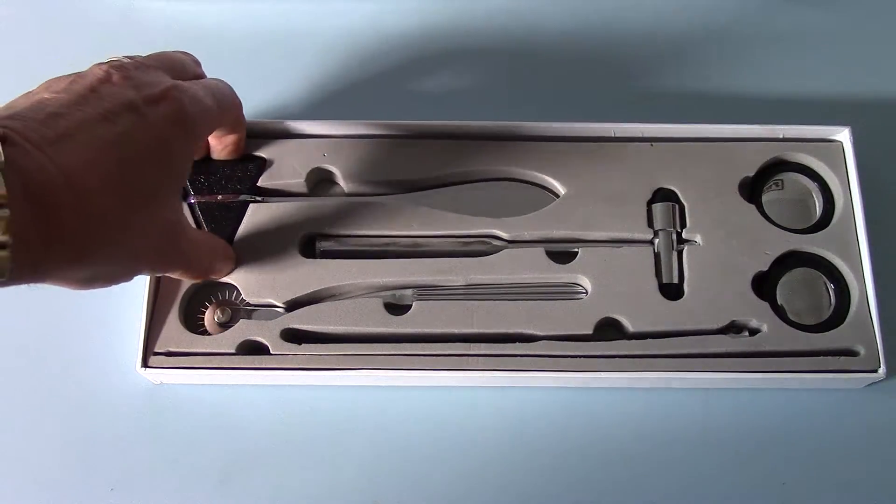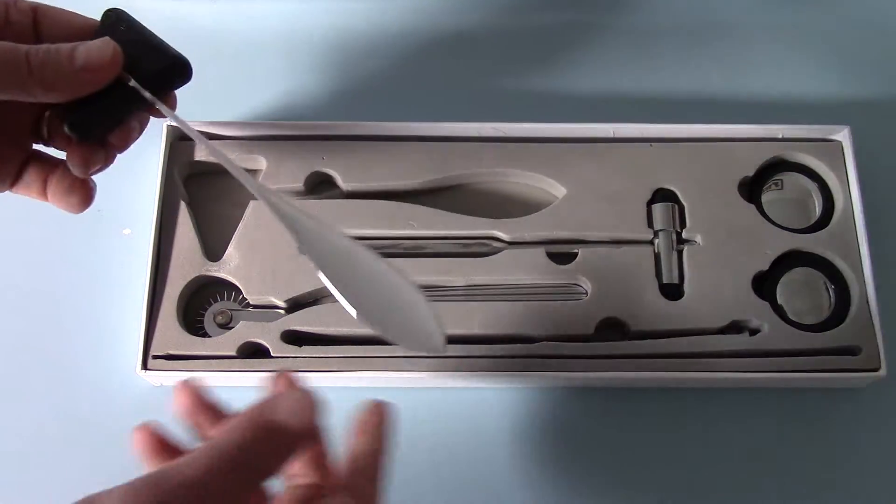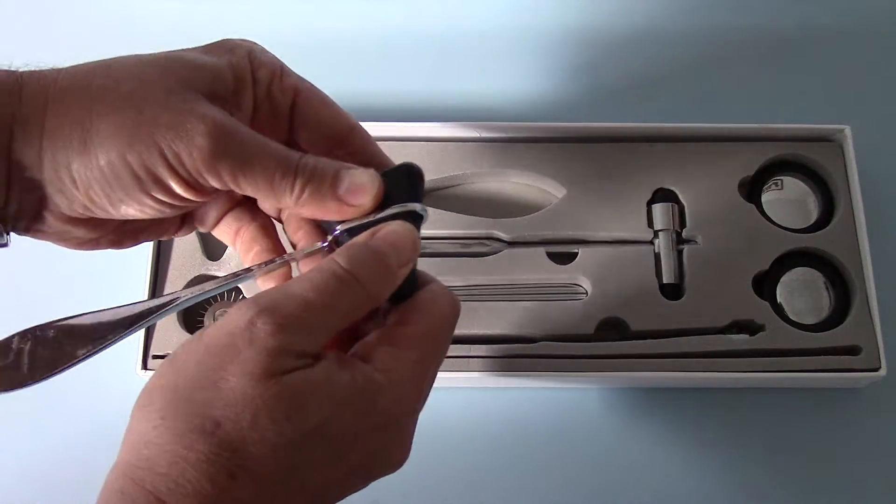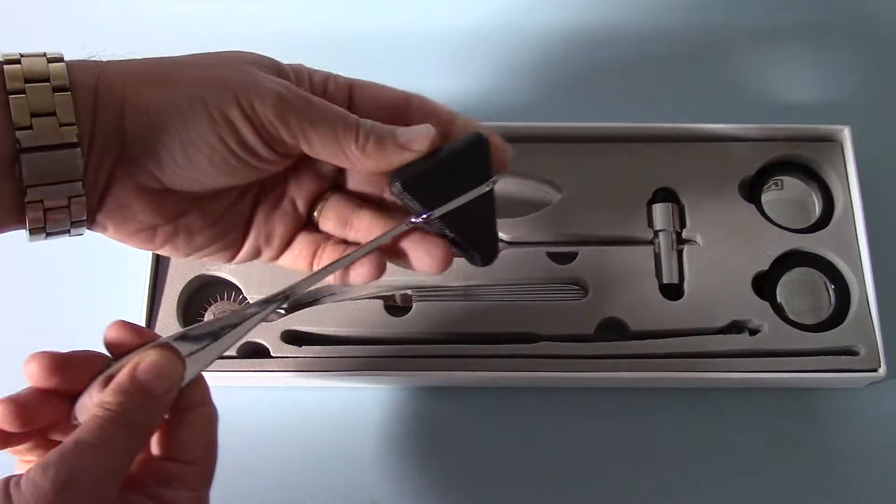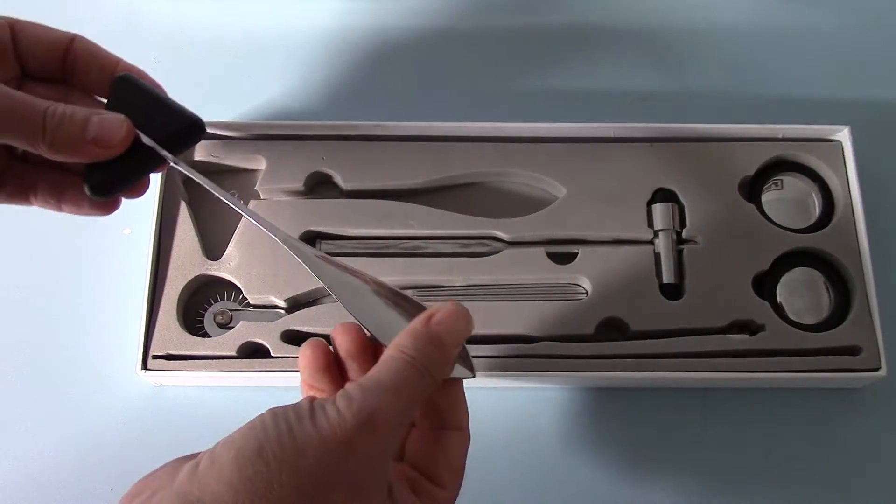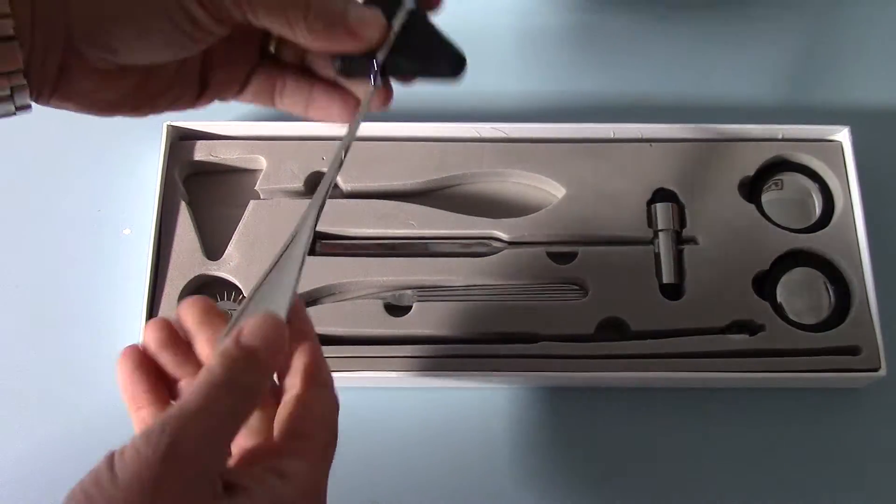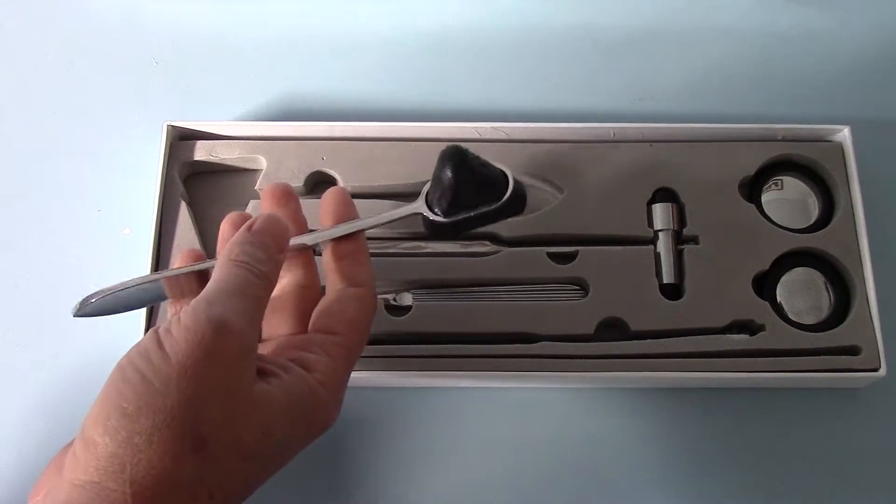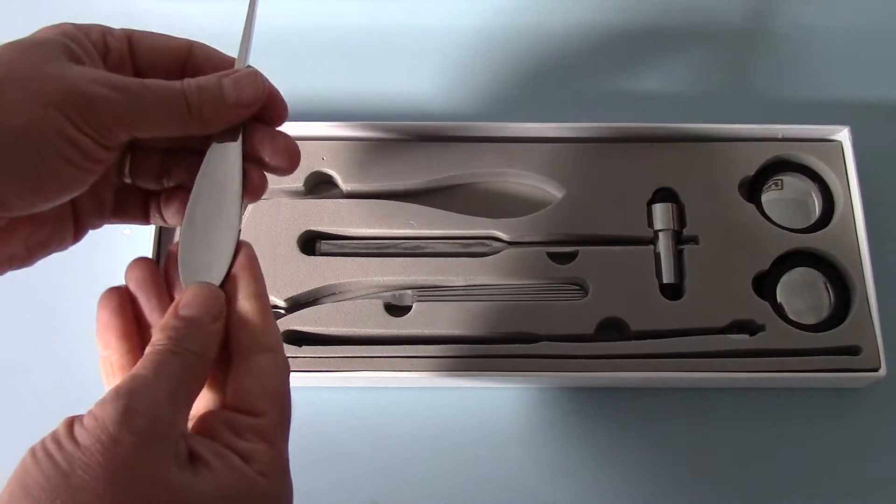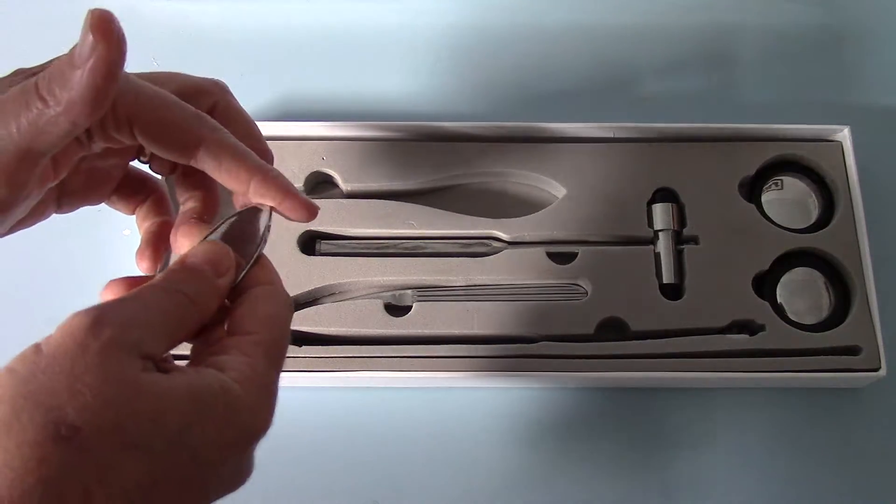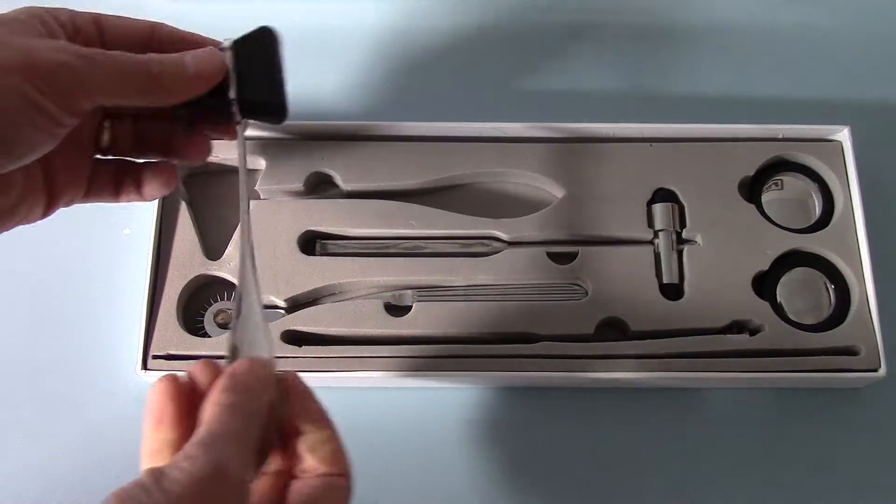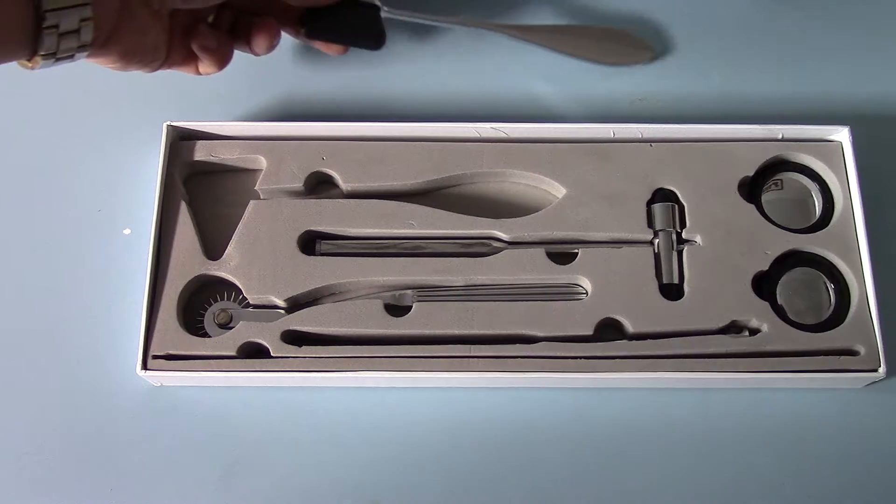Starting with this one, the standard Taylor's 8 inch hammer. It has a firm plastic rubber head which is easy to clean and removable from the stainless steel handle. It's nicely weighted, not particularly heavy, but easy to use and firm. There are no sharp points, although the tip does allow for a firm neurological point examination. That's the Taylor's hammer included in this pack.